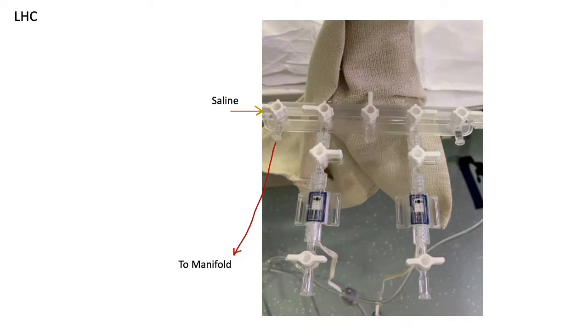The setup for left heart catheterization is just the same, but with two pressure transducers in case you need them. But you rarely do. So here's what we're going to do.